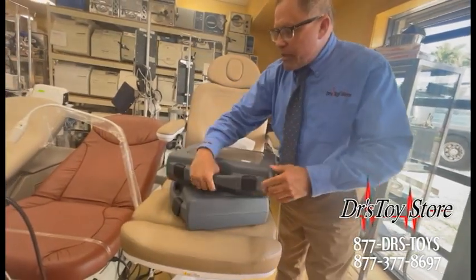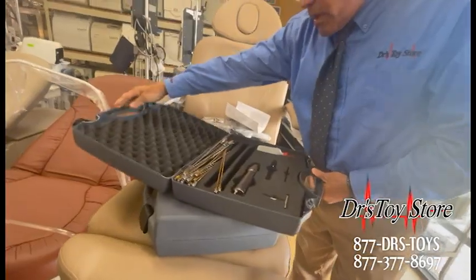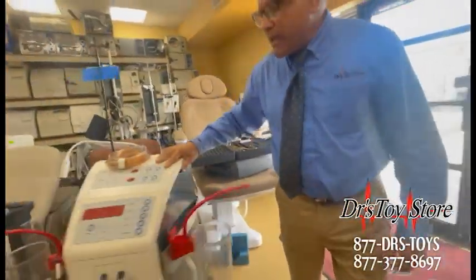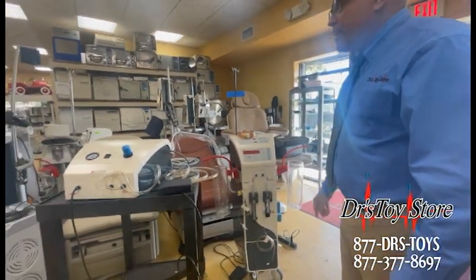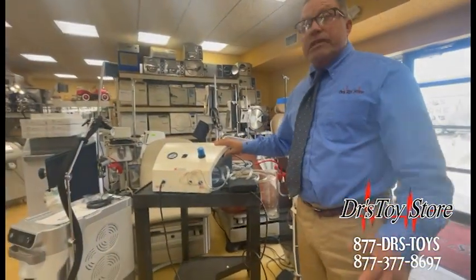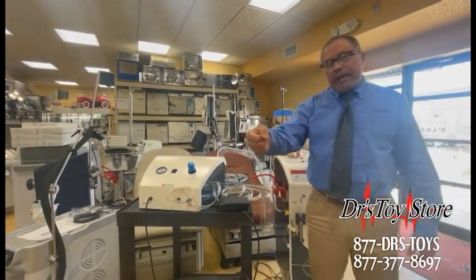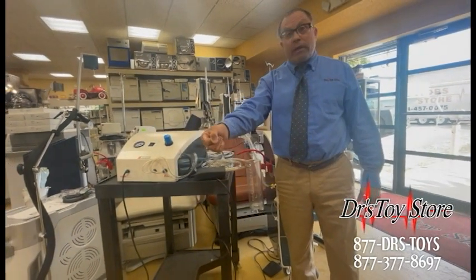We've got other units that came in and about six handpieces in the back. These are complete with everything you need. This is the Uromi P6 — and this is the classic. The classic is all you really need. The whole thing here is it has more vibration than any handpiece, which allows you to break through fat and get the job done a lot faster.